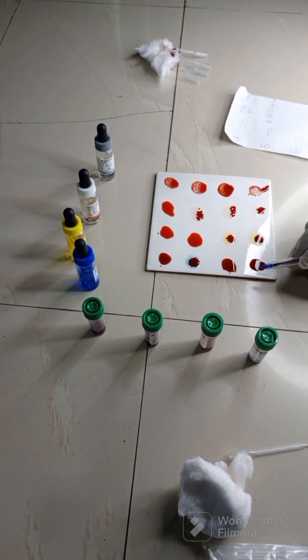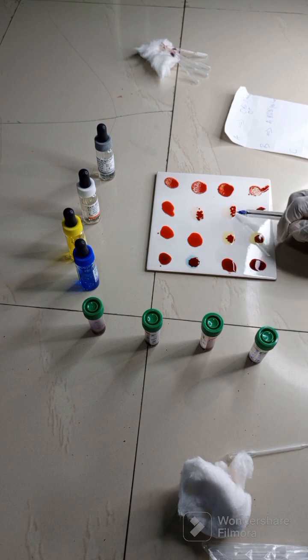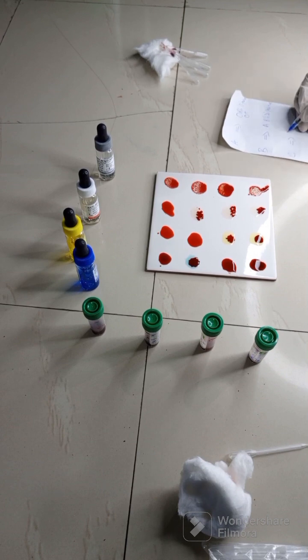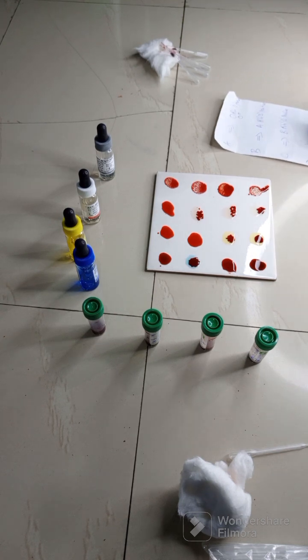Yes. So this third person, what do you think is the blood group? There is no reaction in A, there is reaction in B, there is reaction in AB, and there is reaction in D. So it is what? B rhesus D positive. Okay, this last one, what do you think it is? There is no reaction here, there's reaction here, and there's reaction here. So we'll call this person what? It's the same thing. B rhesus D positive.